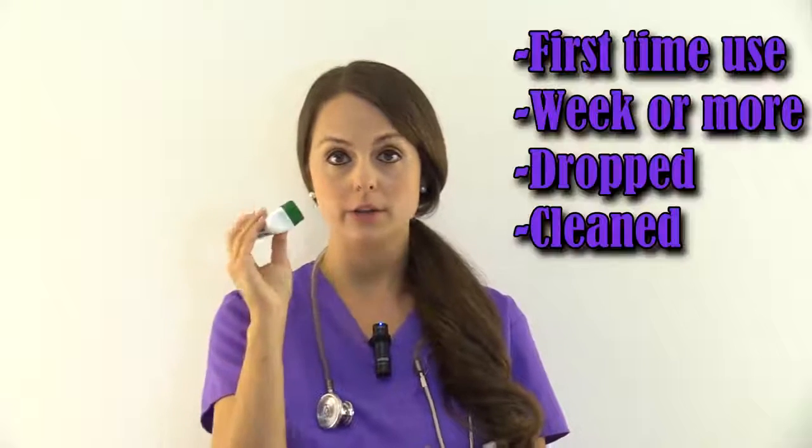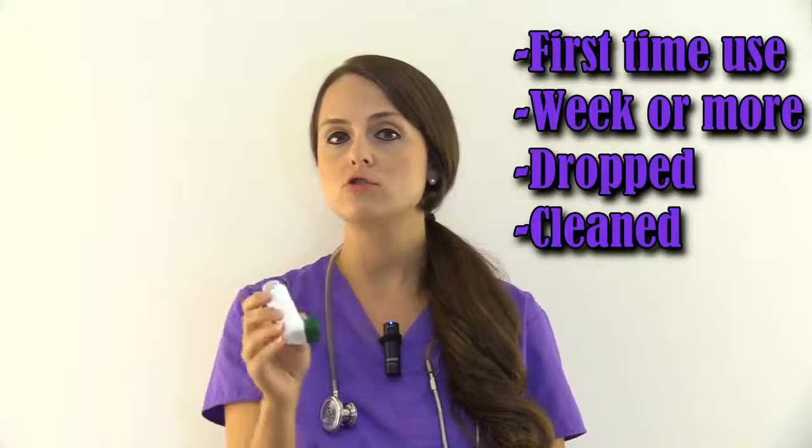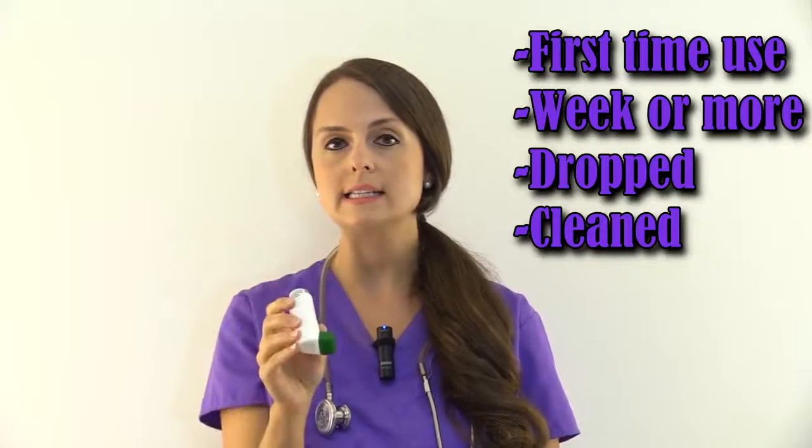Next, what you want to do is prime the inhaler. You're going to prime the inhaler if it's the first time you're ever using it, if the patient hasn't used it in a week or more, has dropped it, or recently cleaned it.